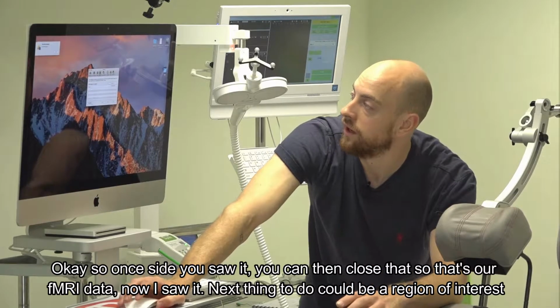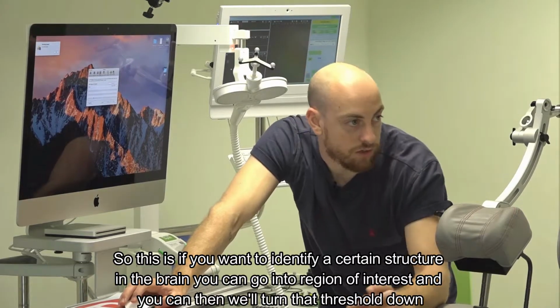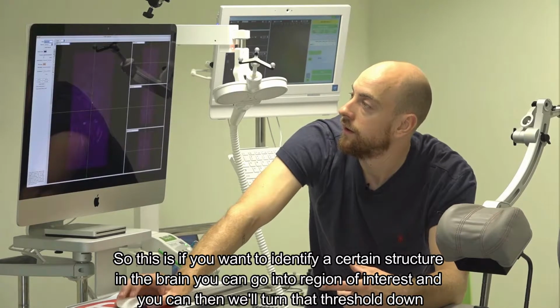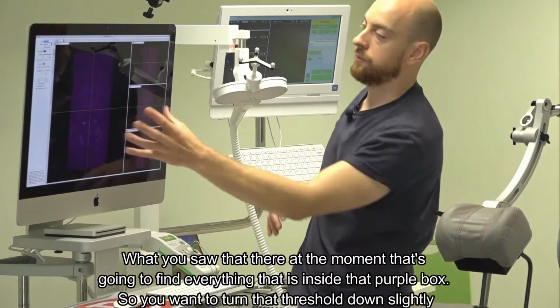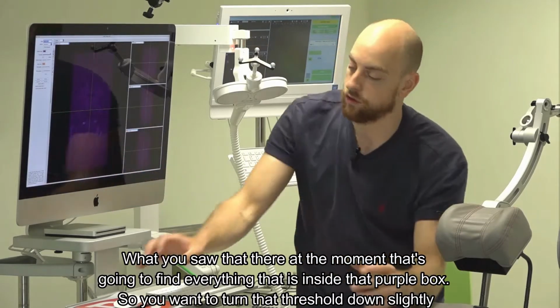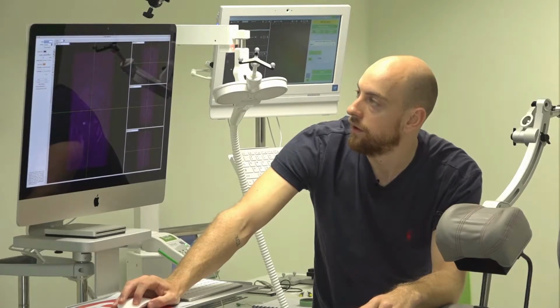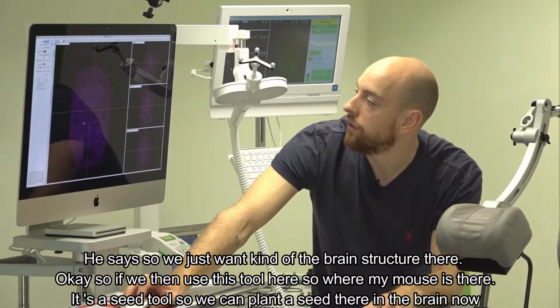Next thing to do could be a region of interest. So this is, if you want to identify a certain structure in the brain, you can go into region of interest, and we'll turn that threshold down. So at the moment, that's going to find everything that is inside that purple box. So you want to turn that threshold down slightly. So we just want kind of the brain structure there.